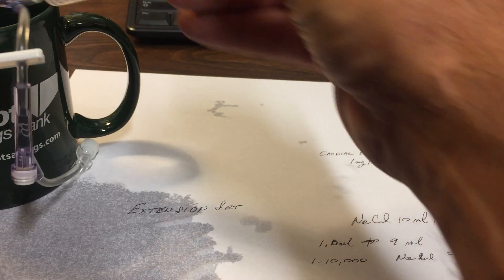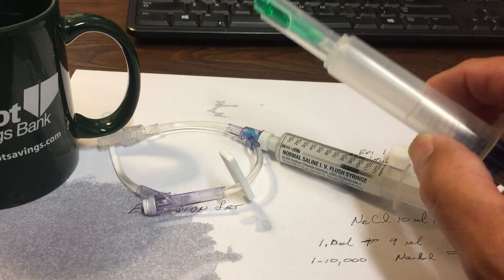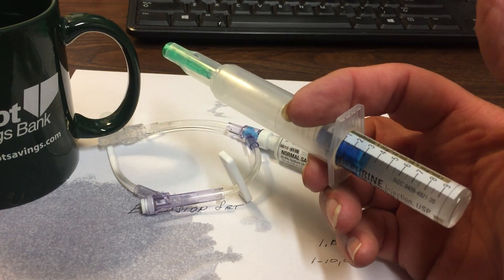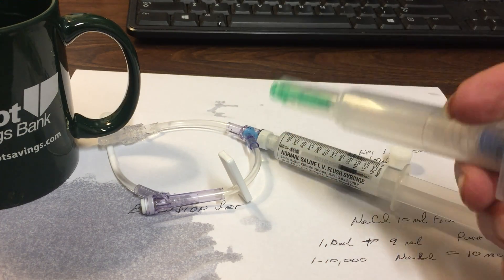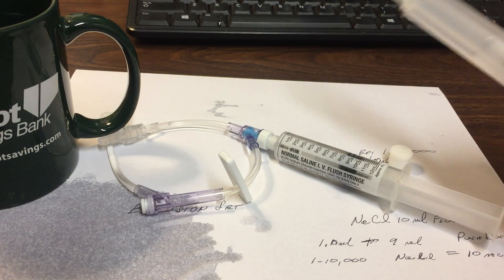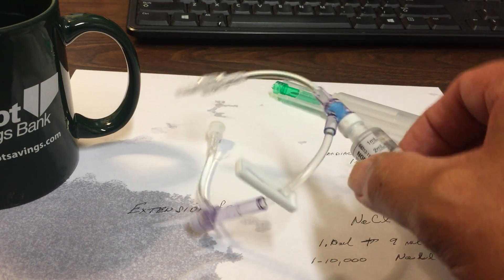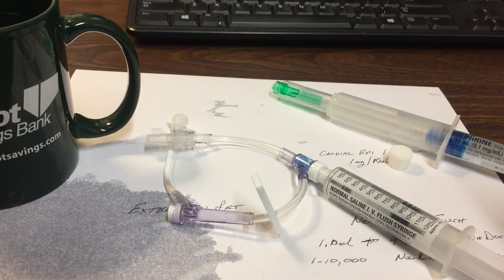We could take and get another syringe ready using this epinephrine, because all we used out of here was 1ml. We can do the same thing — get another one ready if we need to, if we've got a long transport over 10 minutes. We can leave it right on here, interchange — take this one off, put the new one on — and we've got another 10 minutes at maximum dose.